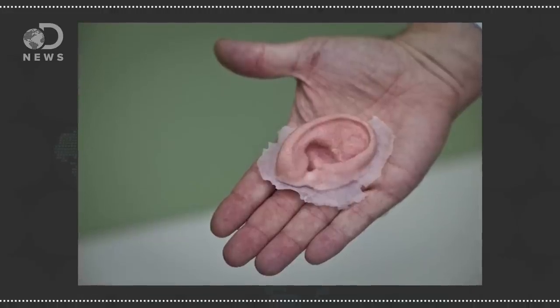It can be super expensive if prosthetics wear out and break and need a replacement part. Now a new part can be printed in a number of hours. And as this technology gets easier and more affordable, now almost anyone can help an animal in need.